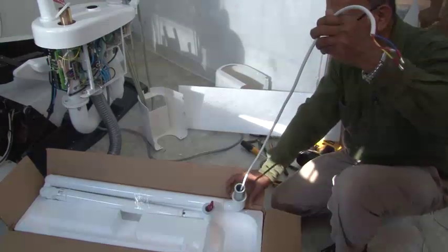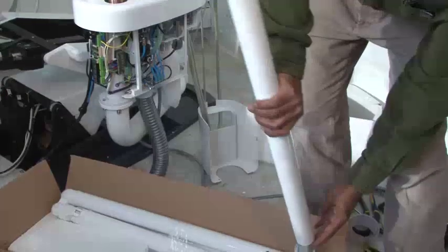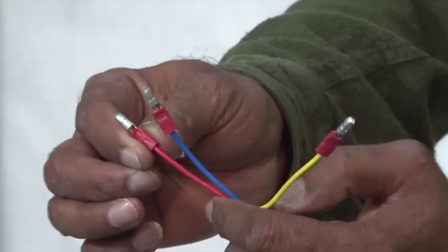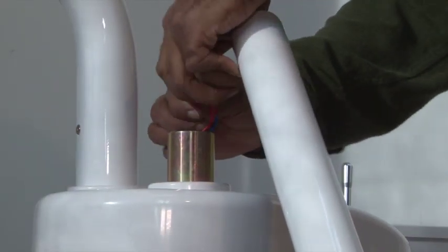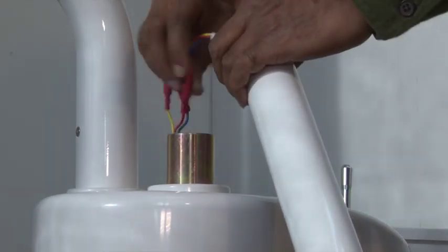Pass the plastic ring through the light pole and insert the light wire through the small light pole. The wires are color-coded. Connect the three wires using the color codes to the corresponding wires and insert the light pole into the pole holder.